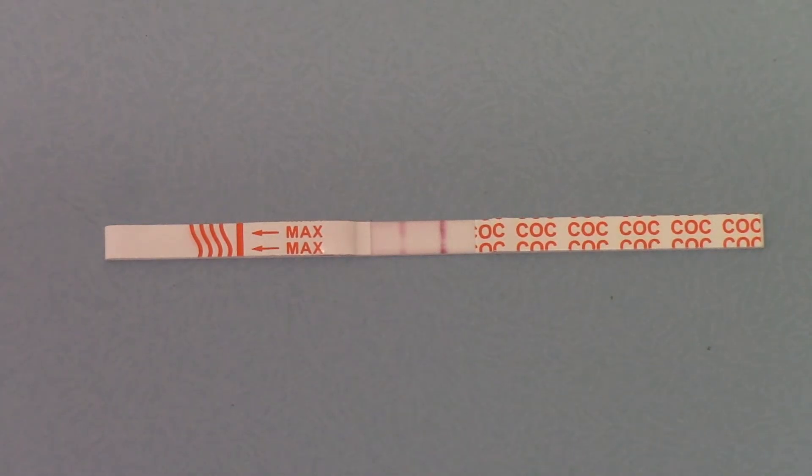The ultra-test membrane screens down to 150 nanograms for cocaine detection and benzoylecgonine, which is the first-line metabolite of cocaine. This offers a test which is basically twice as sensitive as the standard NIDA and SAMHSA cut-off membranes, which are historically tested at 300 nanograms.